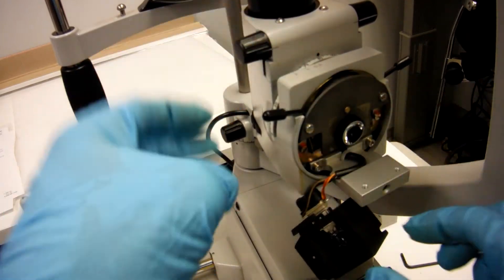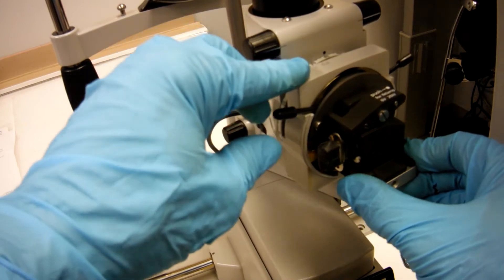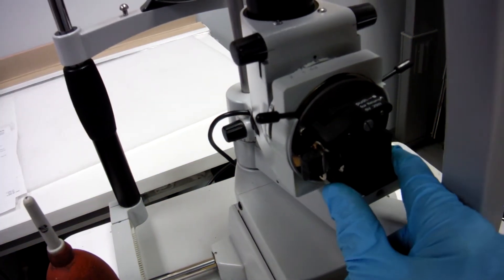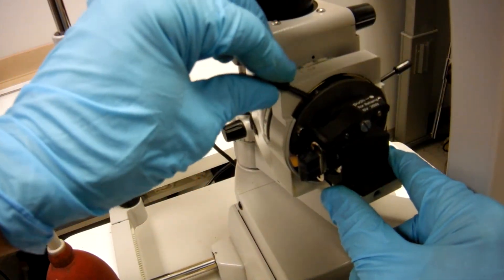Put the condensing lens back on, position your light assembly, get the cleanest light, look through your binoculars, and go through all your diaphragm apertures.